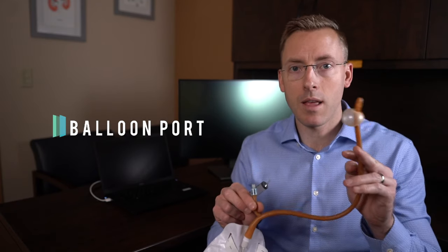The balloon port is what inflates this catheter. So oftentimes what we have you do when you go home is deflate the balloon and the catheter pulls out easily.